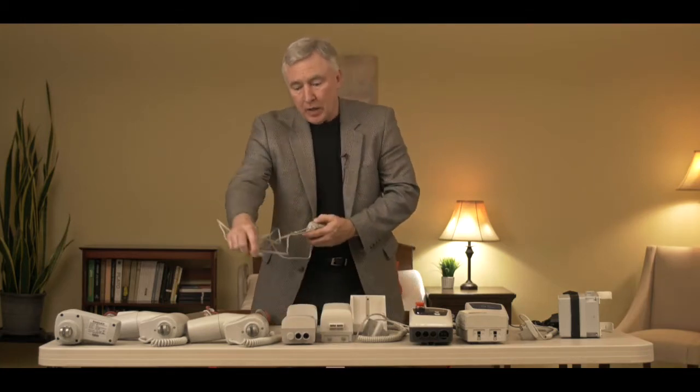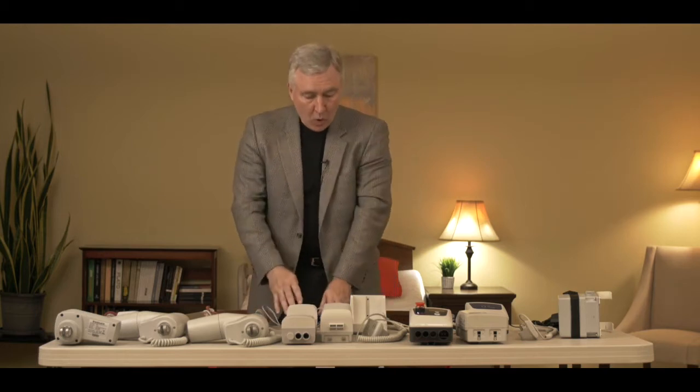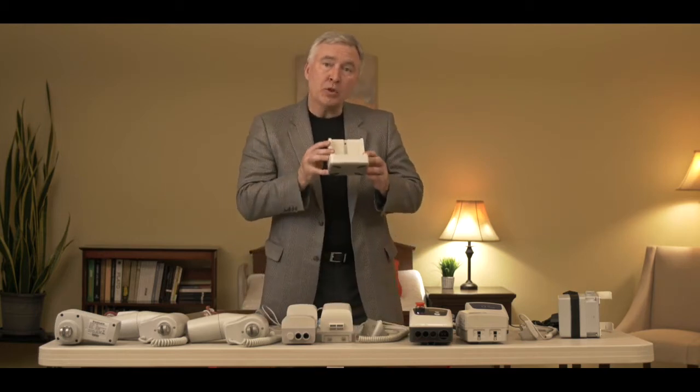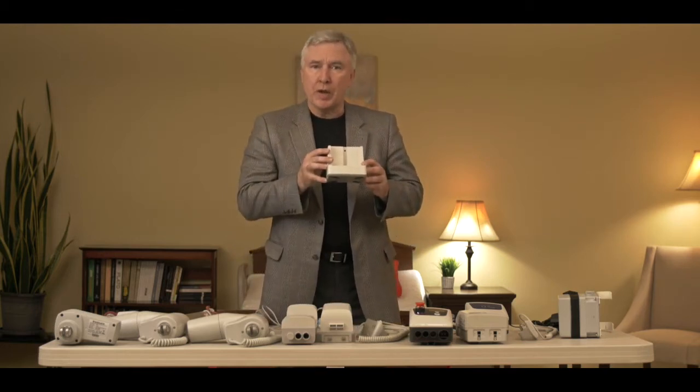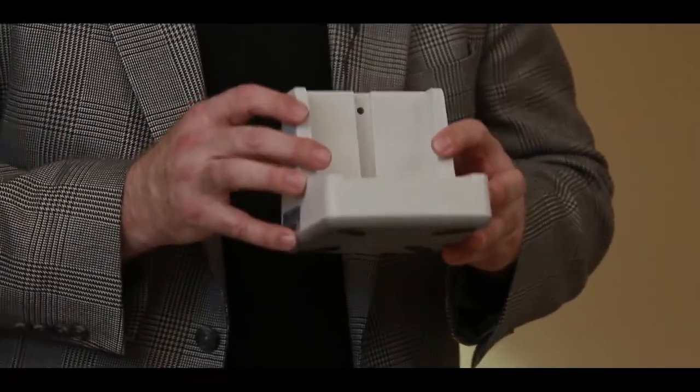You also have the option of plugging the lift into the wall to charge it, or a wall-mounted charger or a desktop charger is available to charge a second battery on the third style of electronics.